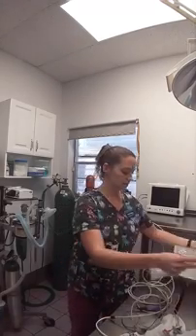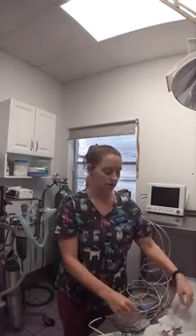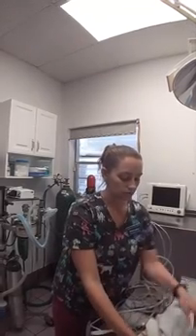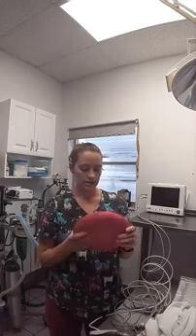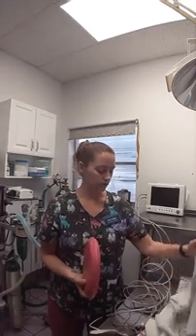We usually have extra towels on hand, and socks or booties if we feel like it's going to be a long procedure. Another heating device that we have is these little heating discs that we put in the microwave, and then put in pillowcases so that we can put them next to the patient when they're recovering, or even during surgery, to help keep them warm.